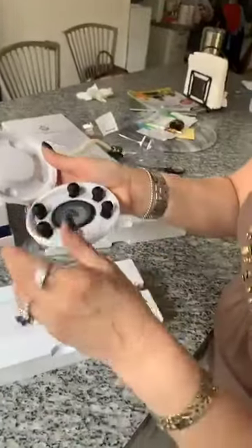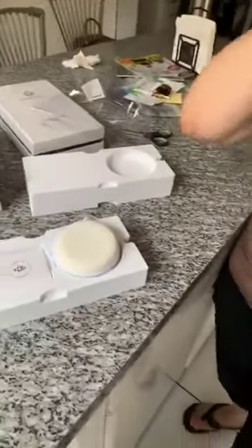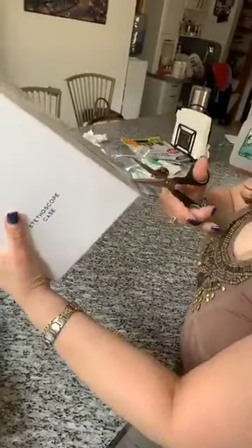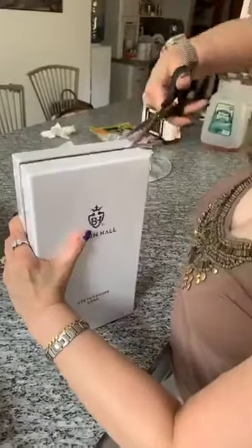I am so excited to get started with this. Let's put it on. Created by Nurse Jenny for Nurse Cheryl. Not only did that come, it's really comfortable too in the ears. I ordered, to protect it and keep it nicely neat in one of my bags, because we all know I was a bag lady. I also ordered this beautiful case in a burgundy color to put my new stethoscope in.